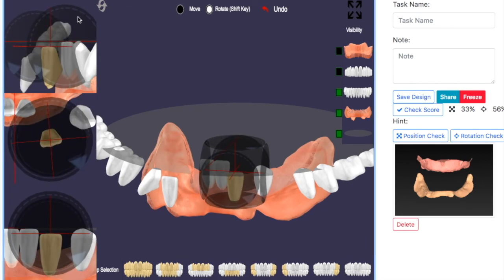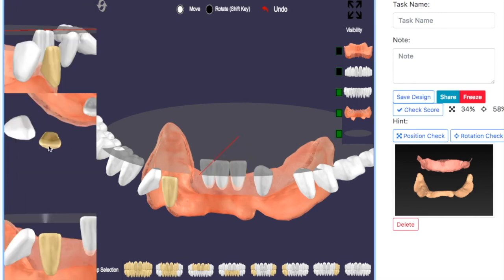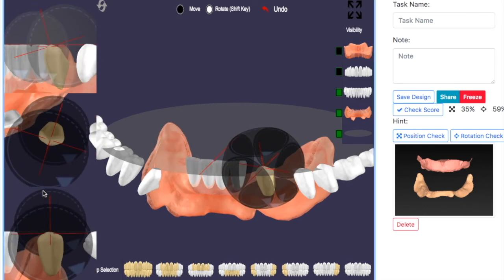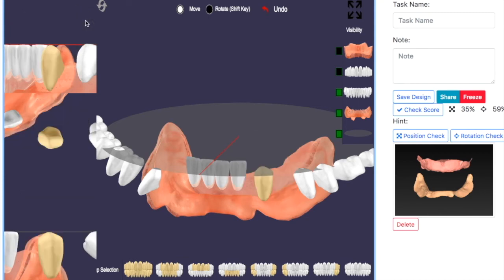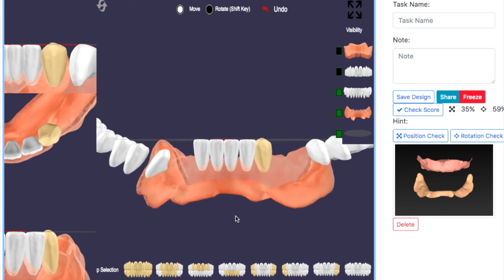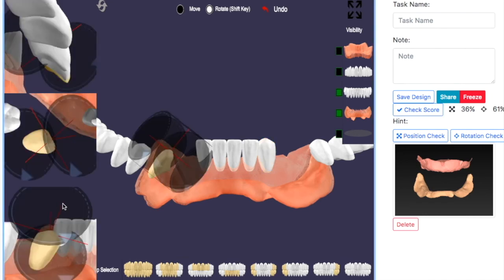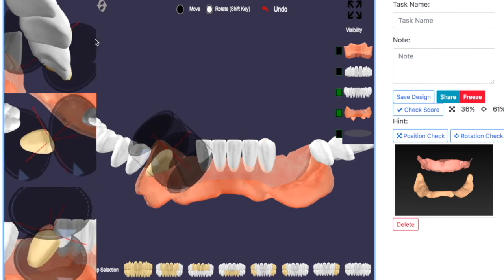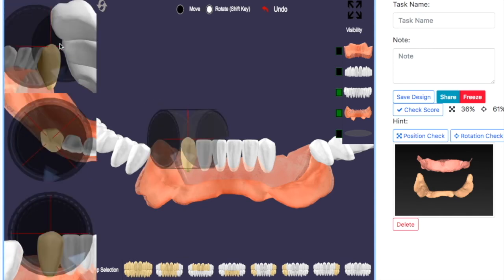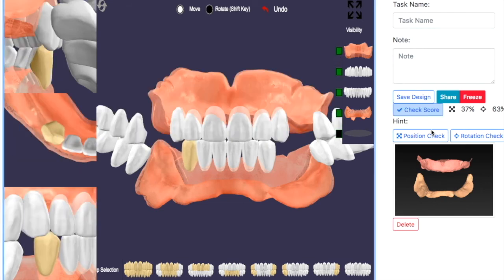The lateral incisor will be set up the same as the central incisor, but you need to look at the maxillary center and lateral regarding the overlapping. The last piece setup will be the canine. The canine also follows the same vertical overlapping, measured from the tip of the canine to the opposing dentition. Vertical overlap and horizontal overlap apply to the canine teeth as well.